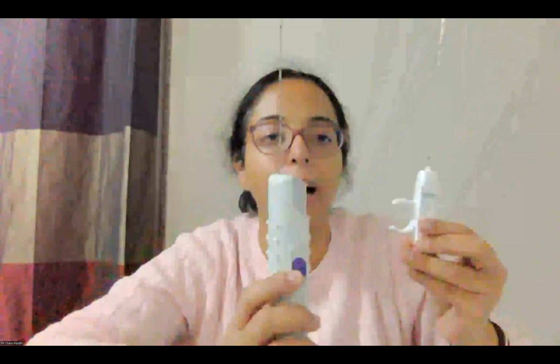Okay, then coming to non-vascular procedures, the most commonly performed procedure is biopsy, and these biopsy guns are the most commonly asked instruments in the table-viva. So the biopsy gun is a biopsy needle attached to a handle. They are used for biopsy of superficial or deep structures. For biopsy guns, you have to know the gauge of the needle and the length of the needle. They can be either automatic or semi-automatic.